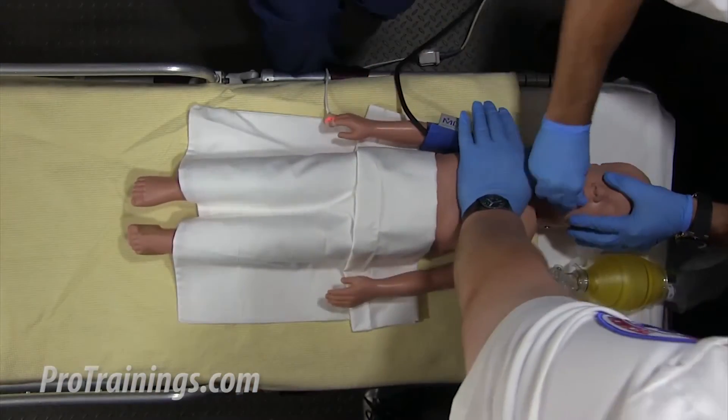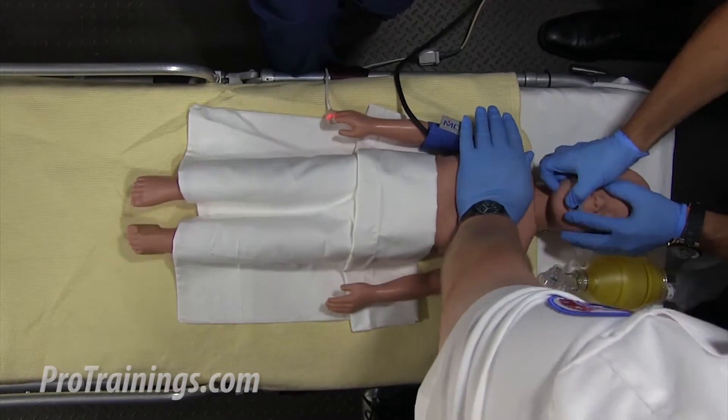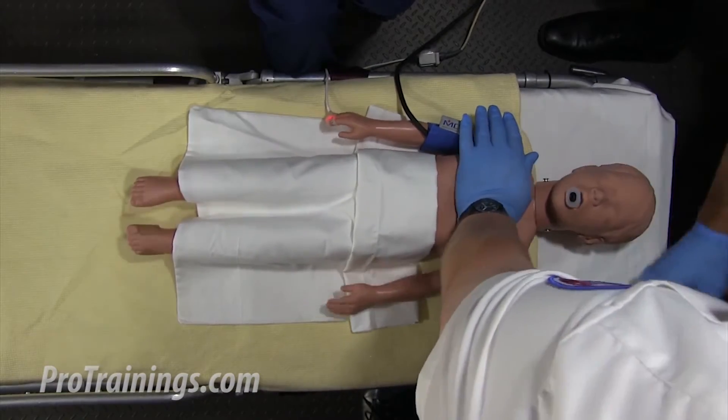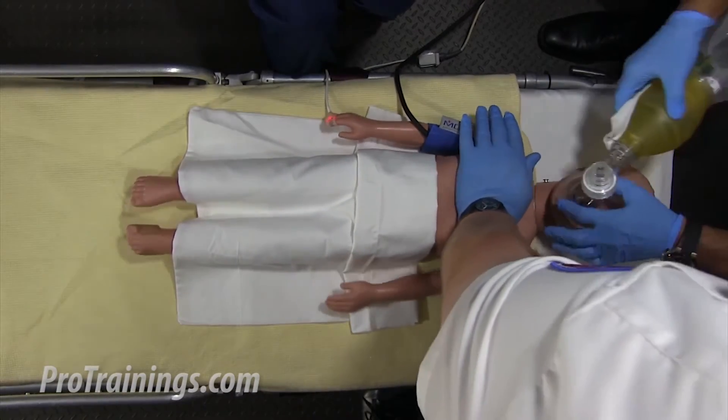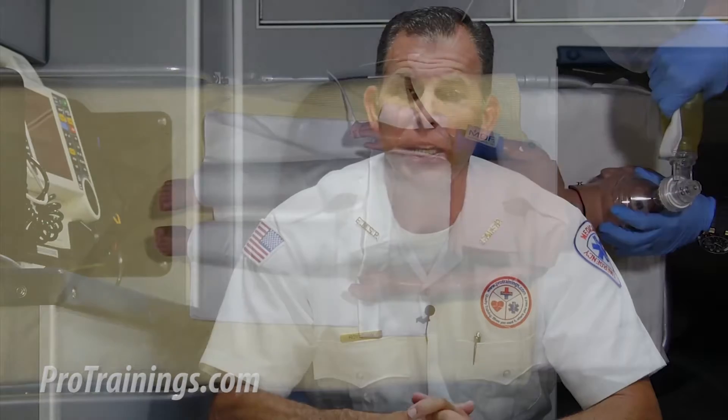Now if for any reason the basic airway is not effective in managing the airway for respirations, an advanced airway should be considered immediately. When we talk about advanced airway devices, we're primarily talking about endotracheal tubes and laryngeal mask airways.